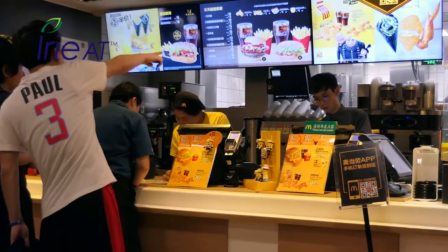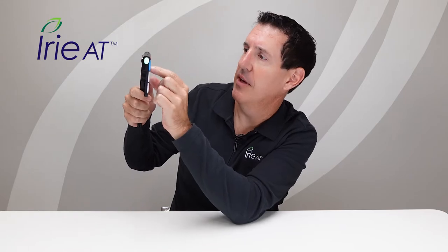If I want to see at a distance, I can just pivot this handle — it'll pivot in and out. This makes it super easy to see counter signs, signs at a distance, counter menus. Really cool — holding it like a magnifying glass but still able to see at a distance.